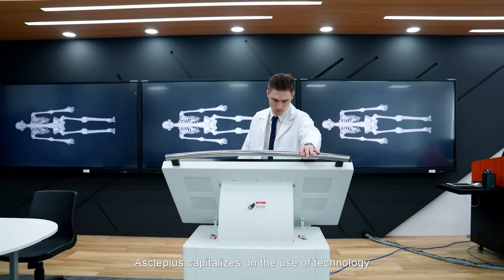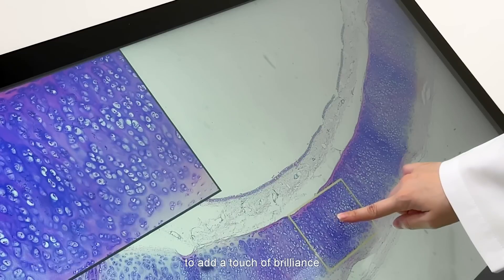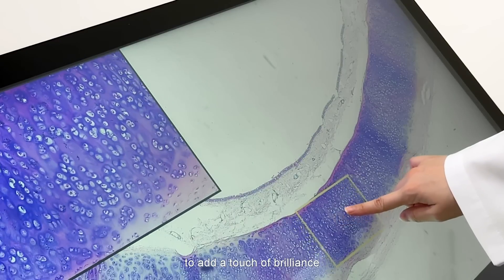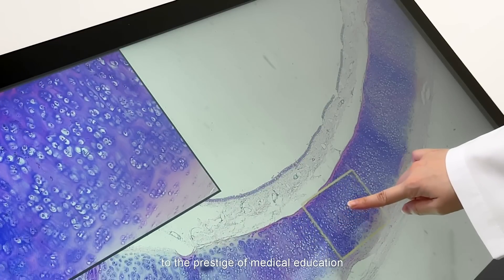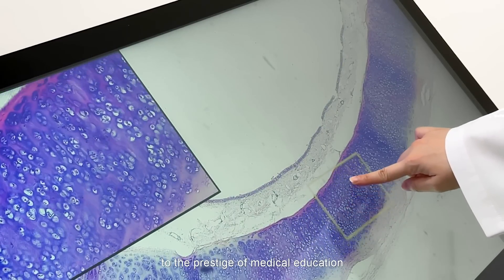Asclepius capitalizes on the use of technology to add a touch of brilliance to the prestige of medical education.